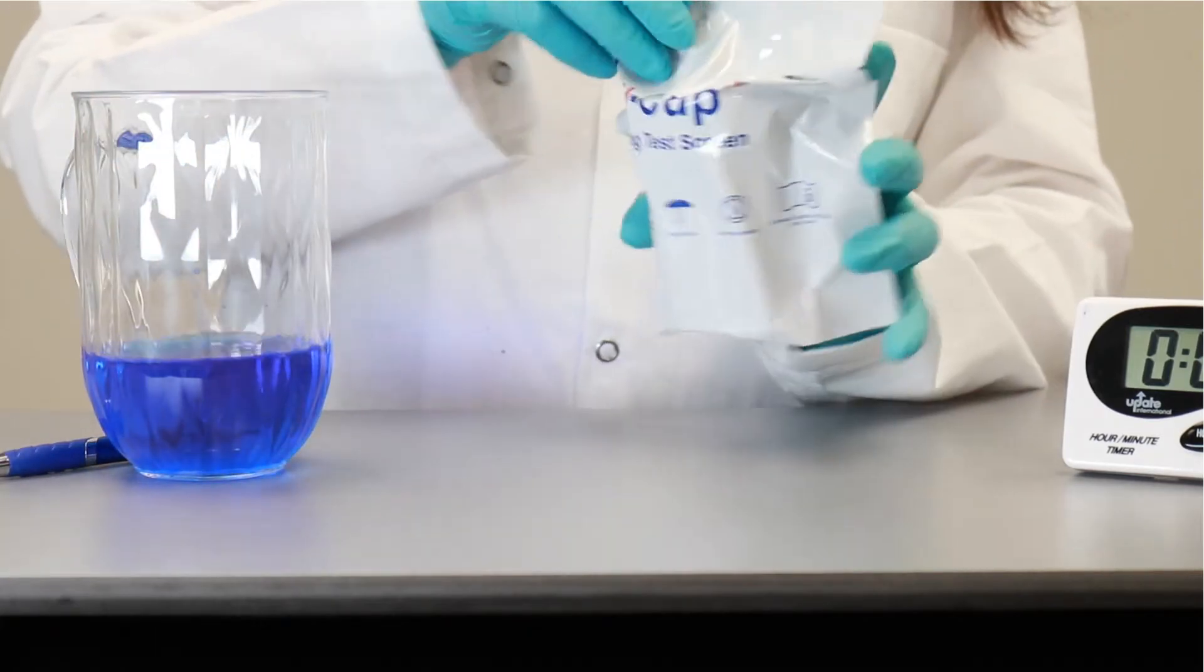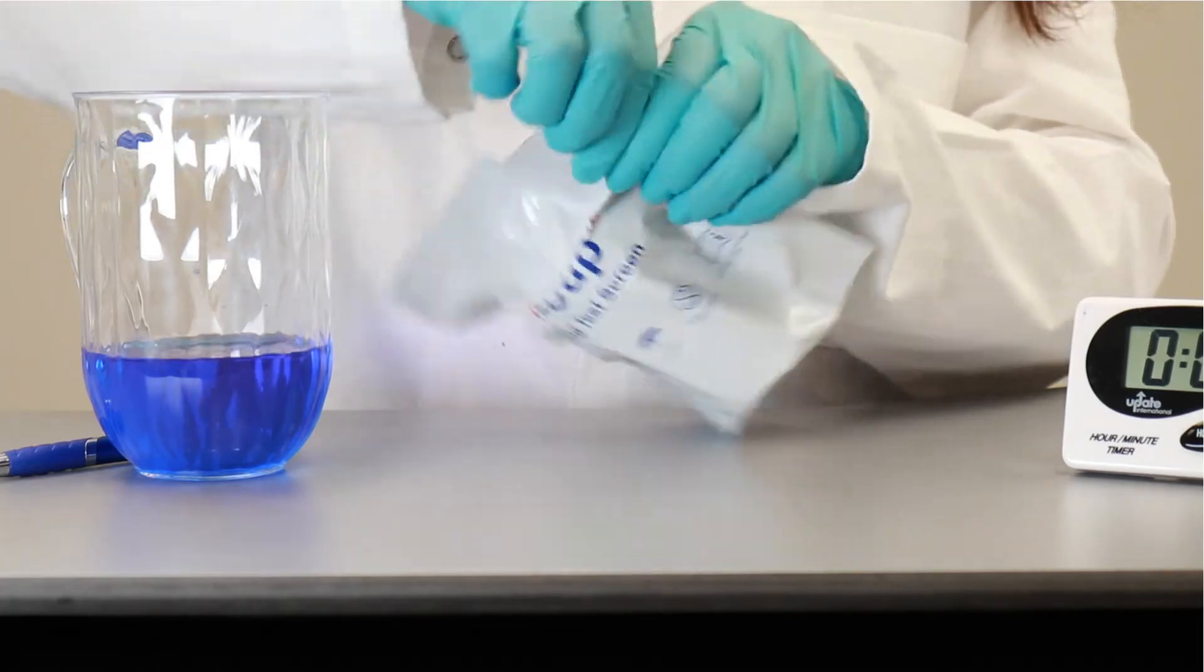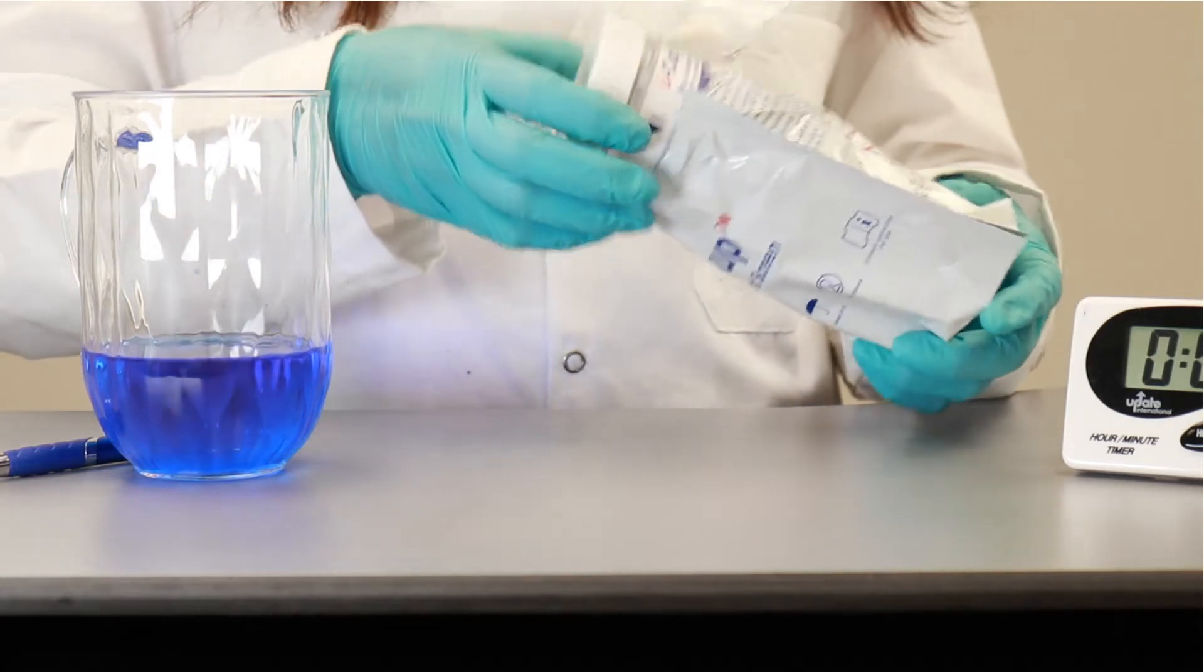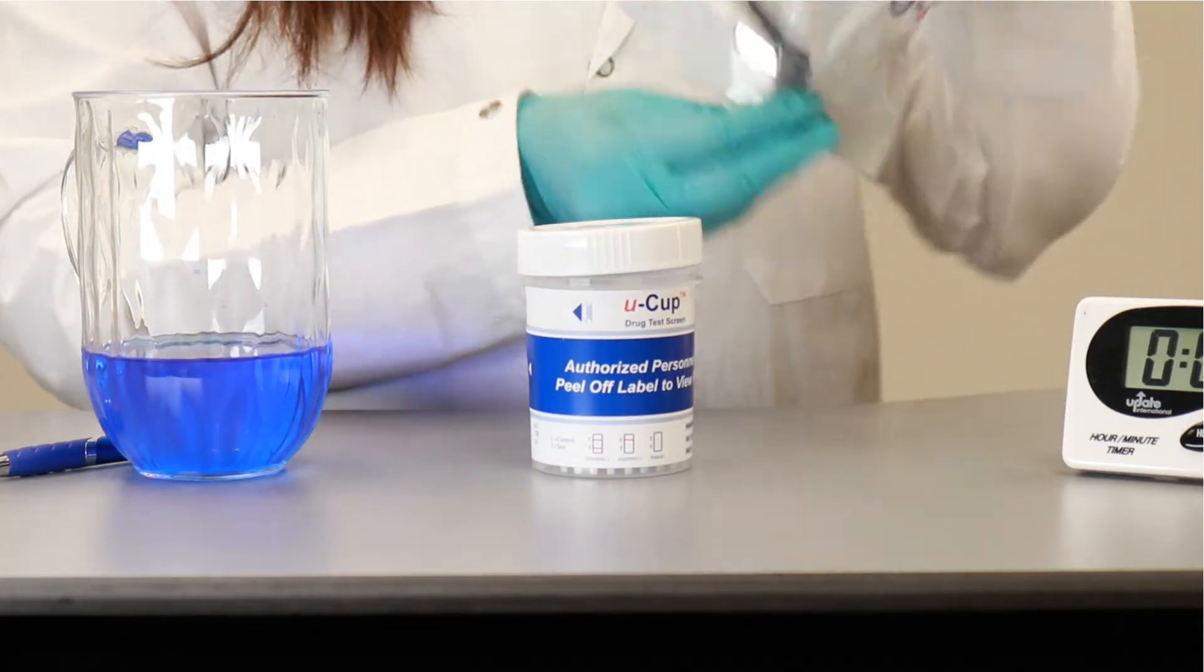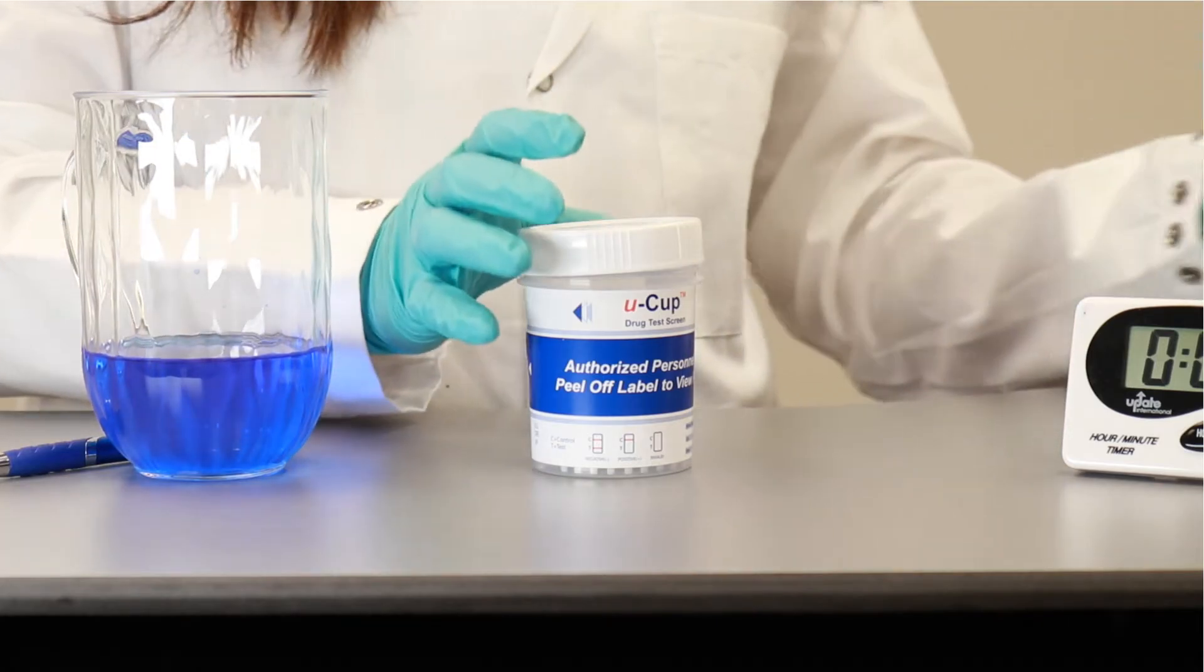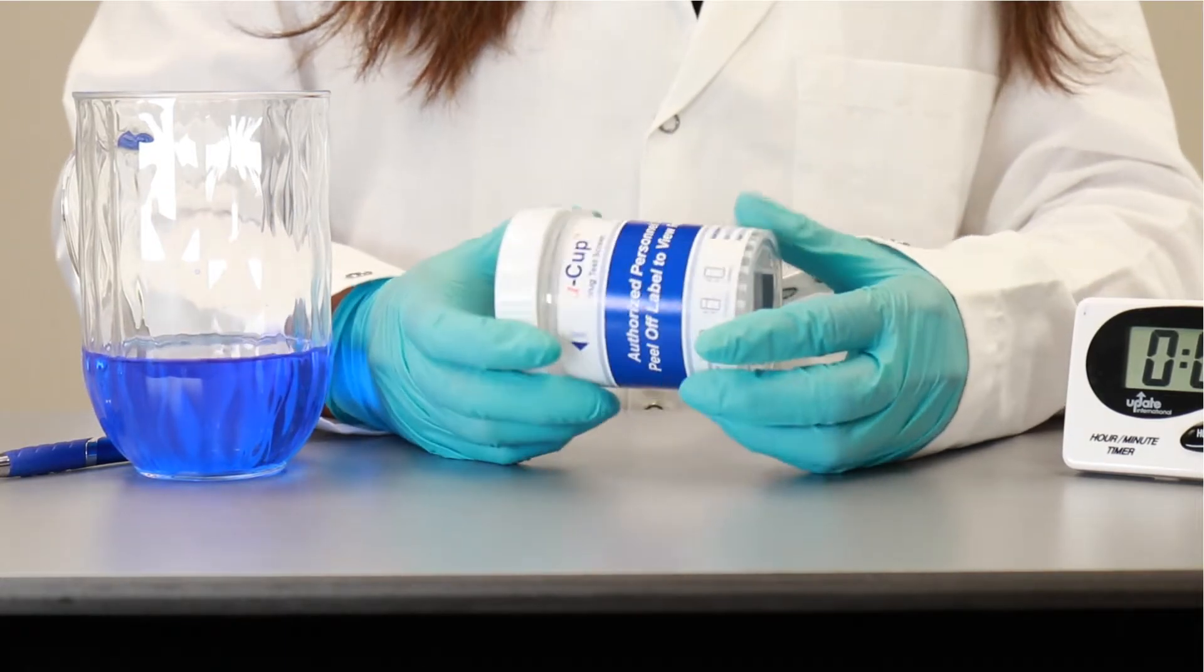So what I'm going to do is I'm going to peel the aluminum pouch and I'm going to take the product out. There is a drying agent up here to keep it in good quality for a long period of time.